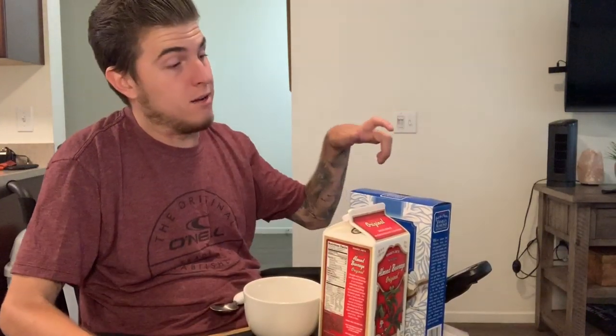I definitely can see how it helps, and I'm curious to see how it'll work with cereal or like soup — something with liquid — because I can't really eat soup because it falls everywhere and spills. So I'm going to make a bowl of cereal and see how that goes. I don't have any soup right now and it's the morning, so I don't want soup. Alright, so we got some vanilla almond granola and my favorite almond milk — I love almond milk. And here's our bowl.